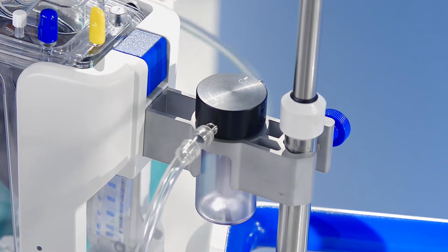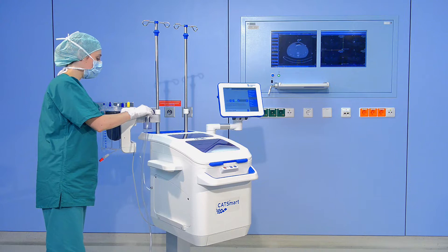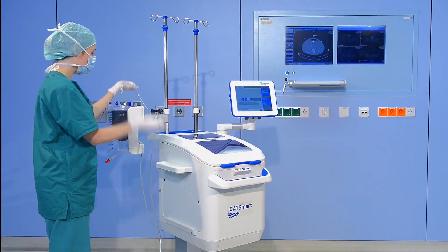Finally, the overfill protector can be connected to the ATR reservoir, yellow cap, via the ATV vacuum line 70.